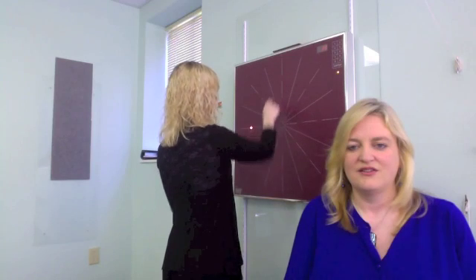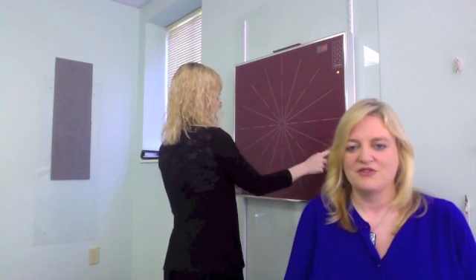You can do this with one hand at a time. You can alternate hands. You can just do whichever hand you feel like doing.